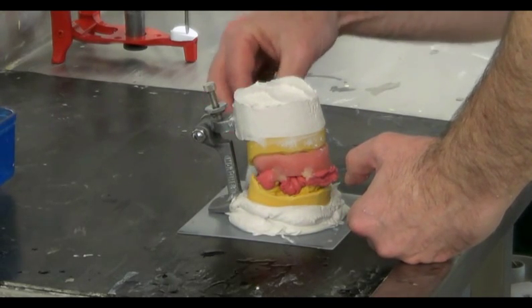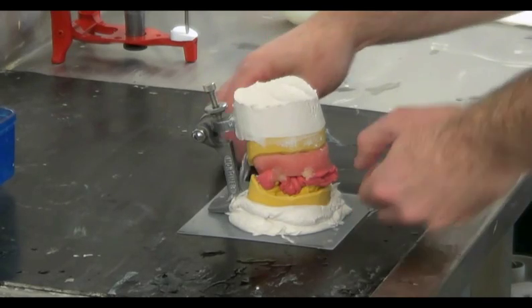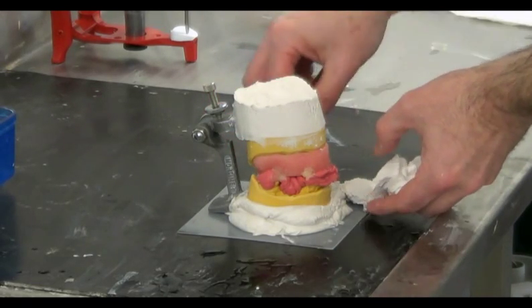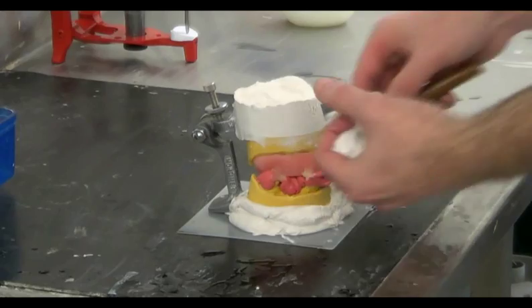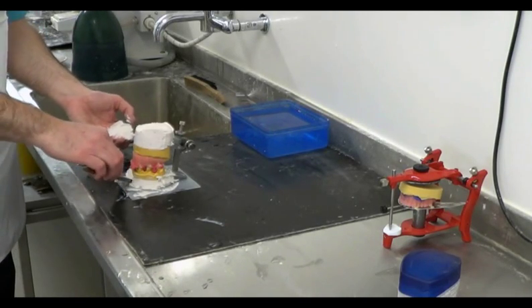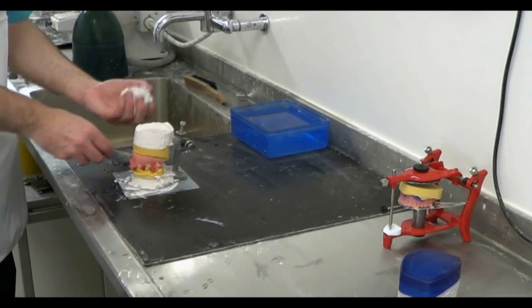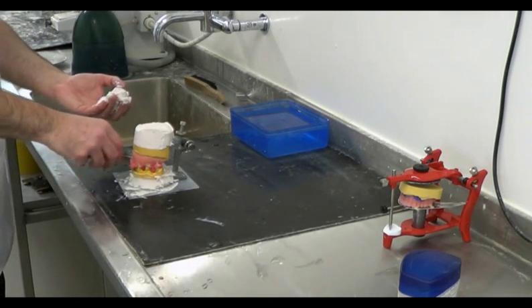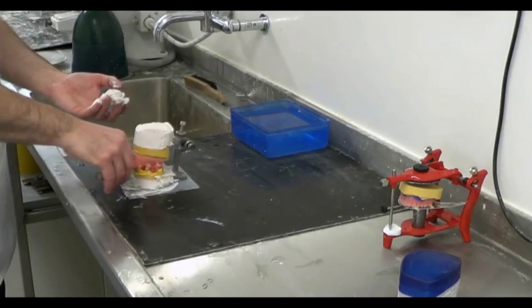With a horizontal top and base and vertical sides, it will make it easy for us to recognize any issues with the setting of the teeth. We can continue to shape the plaster further with a plaster knife as it goes through various stages of setting, but most of it is removed whilst in a plastic state.